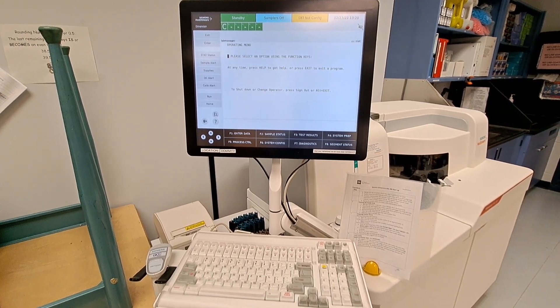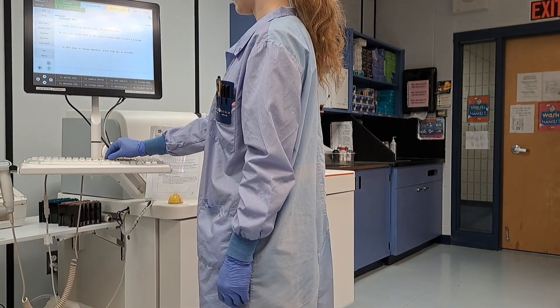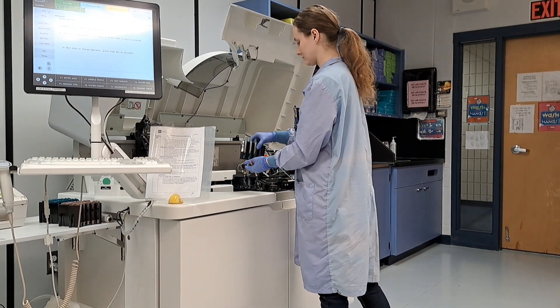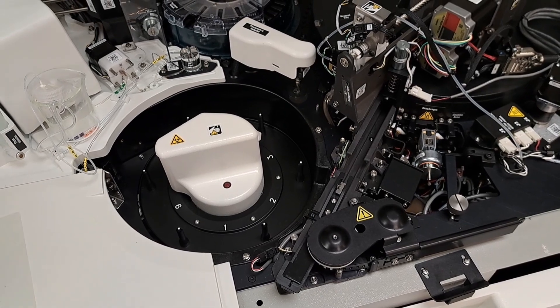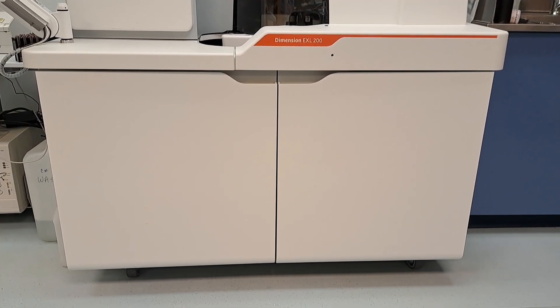Let's lift the lids of the analyzer and clean the sample area. All that is needed is a cloth dampened with water to clean inside. The analyzer covers can be closed and we can empty the cuvette waste. The EXL also has two front opening doors — the left side containing fuses, pumps, and waste receptacles for the HM module, as well as the wash solution for that region. The right side contains the receptacle for the cuvette waste, various detergents, and the roll of plastics used to make the cuvettes on board.